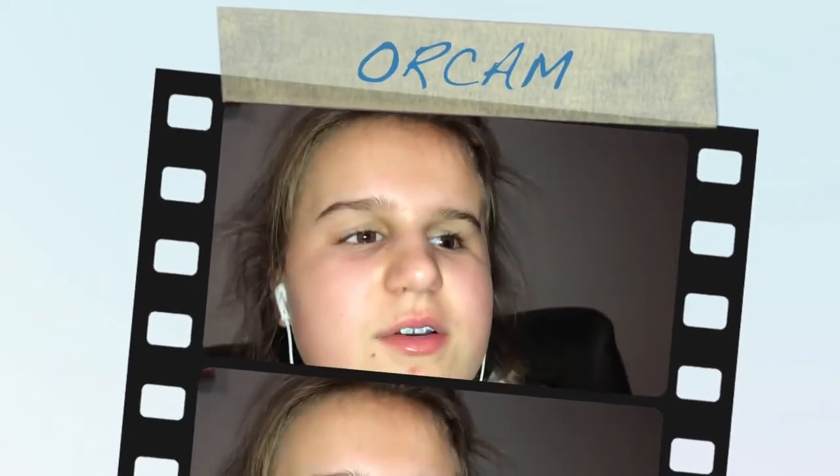Oh wow — how are you going to use this? I'm going to go through everything with it because it's really cool. Look at all the things that are really cool. I don't think I've ever had glasses like this. What do you think about it? It can be on every pair of glasses because there are two magnets on the bottom of the glasses, and you can use the OrCam — it's like a USB stick — to attach it and upload things. I'm happy with it, and I hope I'm going to be more independent. Until the next time, bye!